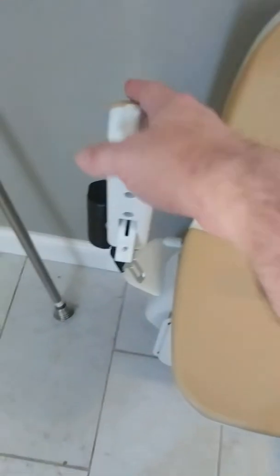The seat folds up and is easy to clean. It has some cushion to it, but you're only on it for less than a minute, so you don't need a lot of comfort. It has a seatbelt, a toggle so when you get to the top of the stairs you can swing the chair for easy exit, and dual controls so it works whether you're left-handed or right-handed.